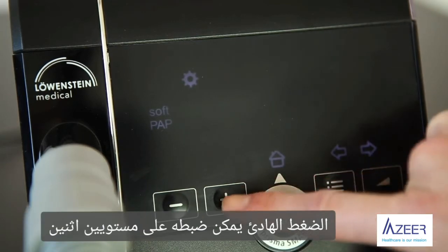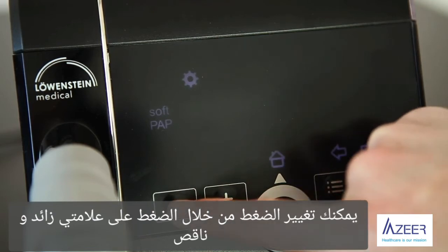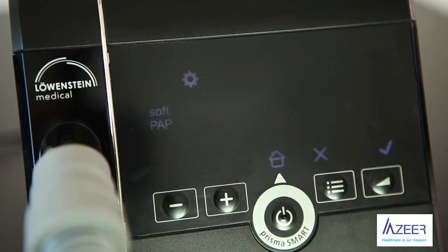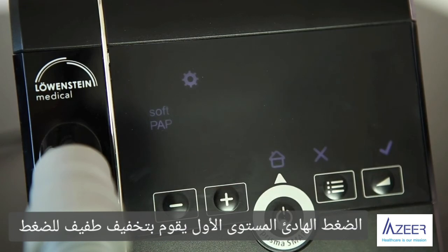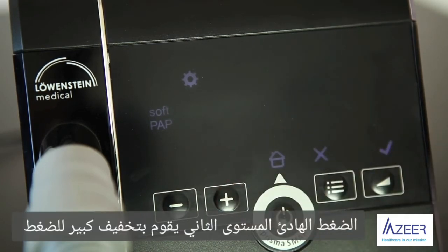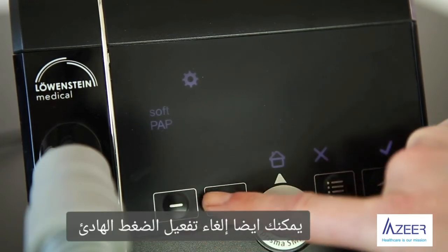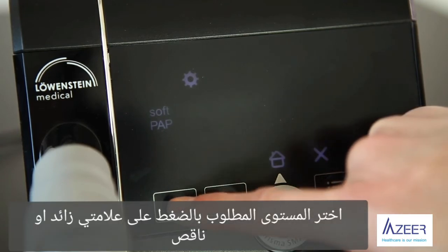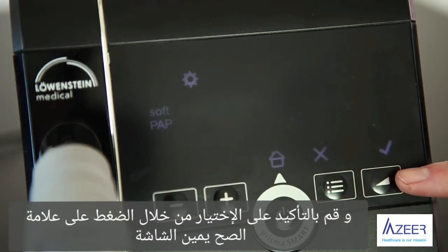SoftPAP can be set in two levels. You can change the SoftPAP level by pressing plus or minus. SoftPAP level 1 is a slight pressure reduction. SoftPAP level 2 is a somewhat greater pressure reduction. You can also deactivate the SoftPAP. Select the level you find comfortable with plus or minus and confirm your selection with a small check mark on the lower right of the screen.